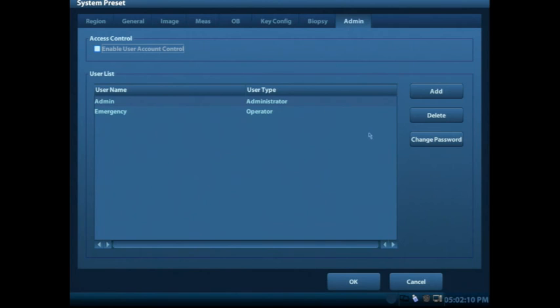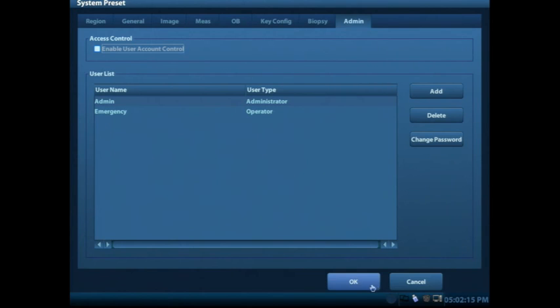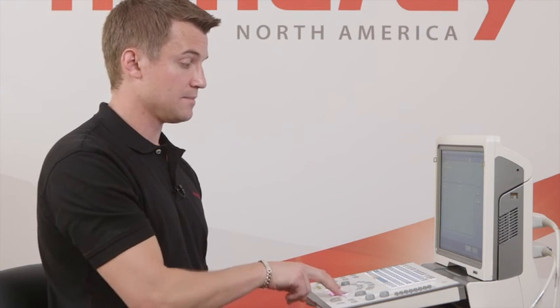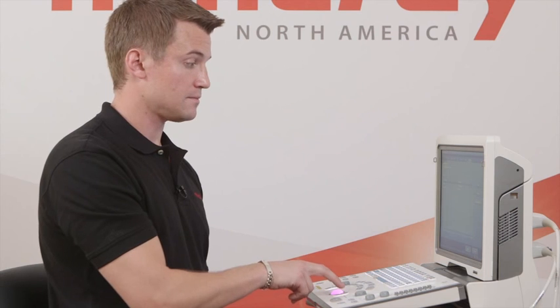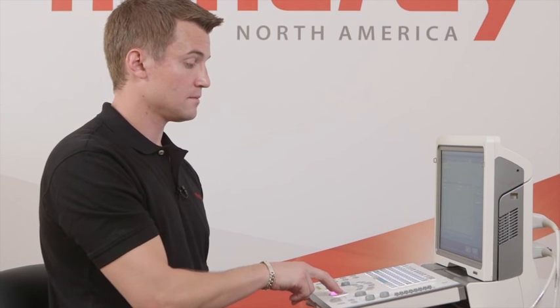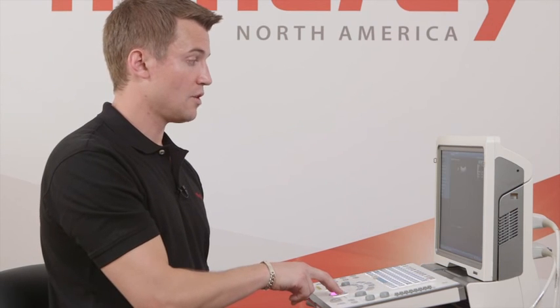After you make any changes in the setup screen, you want to make sure that you come down to the OK button on the bottom of the screen. That will save the changes that you've made. So I'll scroll down here to the bottom and press OK with the trackball to move my cursor and the set key. And I'll go ahead and save the changes.